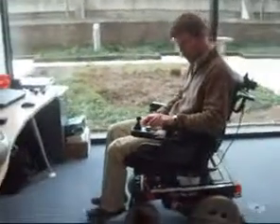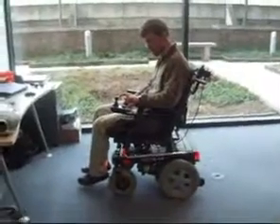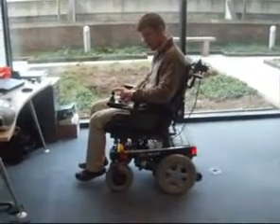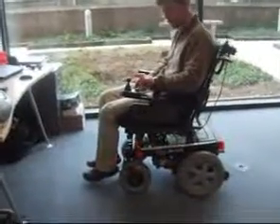Finally, if lights are installed on the chair, they can also be selected and controlled by the joystick. Here the hazard lights or the indicators are switched on and off. Now let's take a look at the other side of the chair.